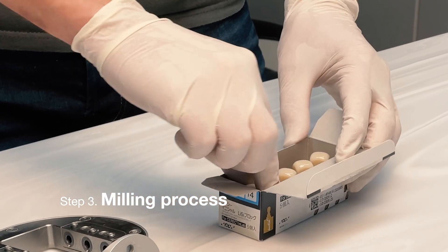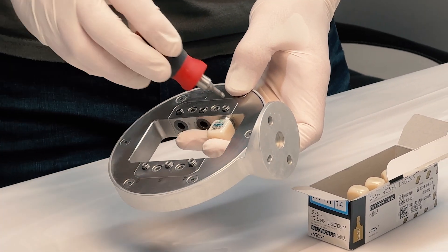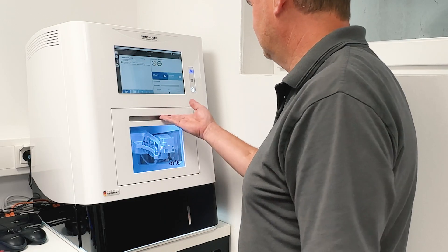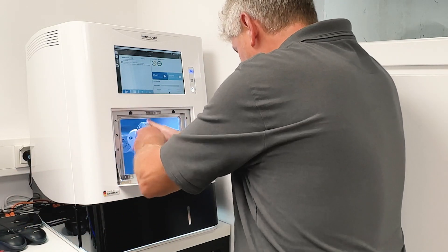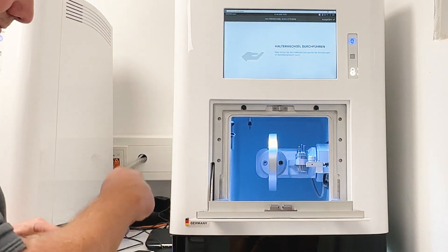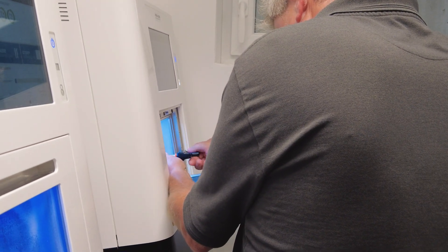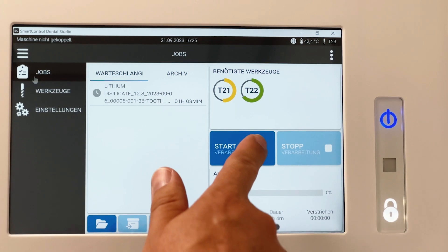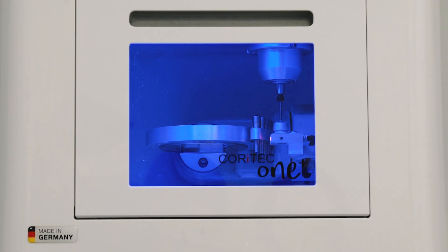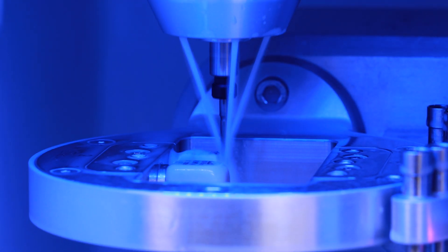Now I'll show you where the dentures are made — that's where we mill. First, we prepare the machine. We clamp the blocks and holders and mill two crowns from lithium disilicate blocks. The machine comes with the appropriate tools for clamping and holding the blocks. Dentists can do this themselves or have a team member or dental technician do it. The machine is easy to use with a touch screen. Our milling machine can also be used to mill disks and process many different materials. The possible indications are unlimited — from inlays, veneers, crowns and bridges to full dentures.